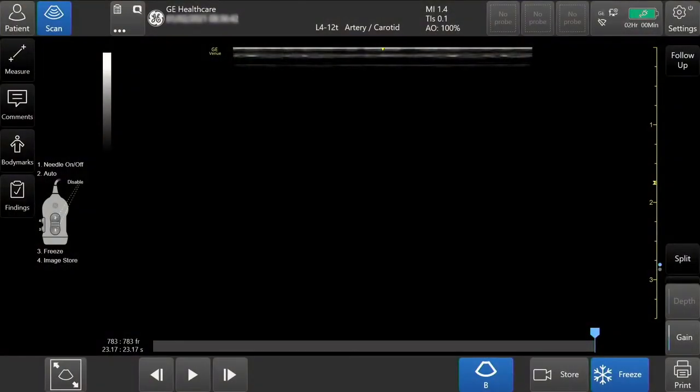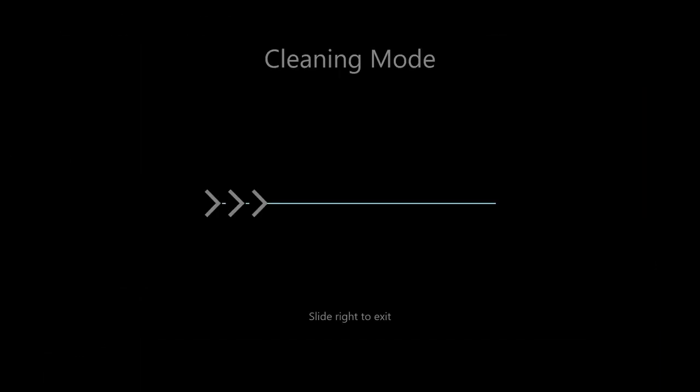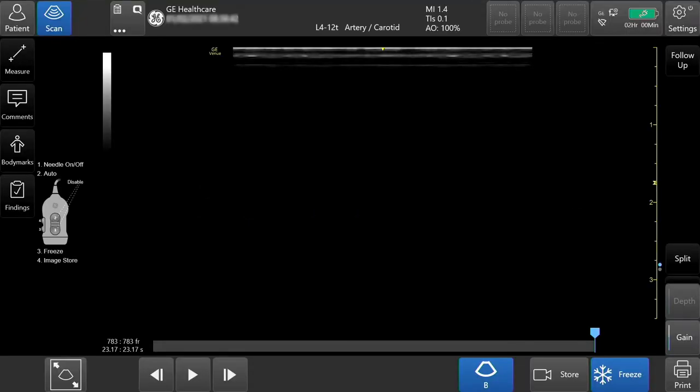The Venue Go was engineered with a seamless flat display for easy cleaning. To allow cleaning of the touch panel display without affecting the system operation, tap settings, then tap clean. Swipe to exit. For a complete list of approved cleaners and disinfectants, visit gehealthcare.com.